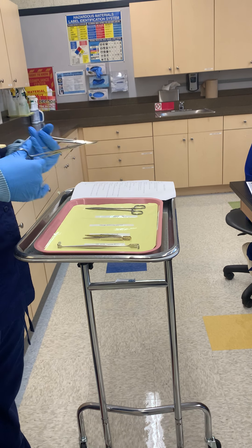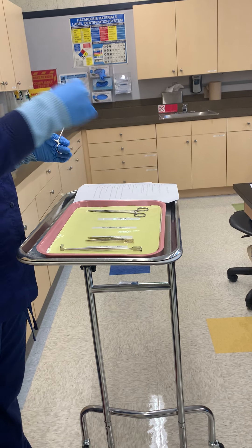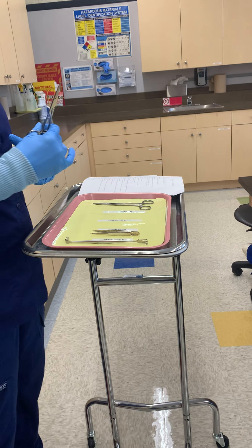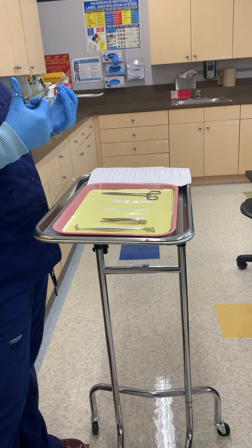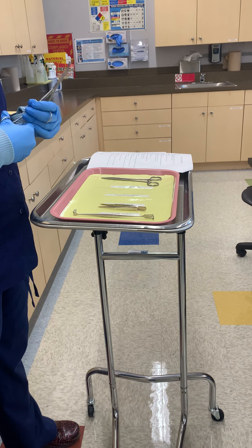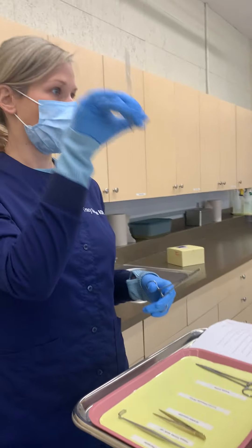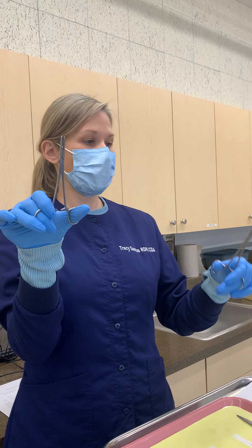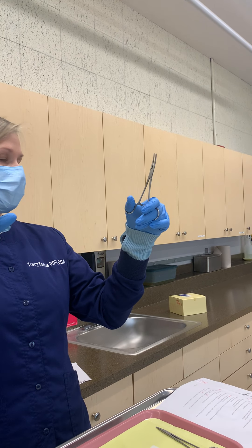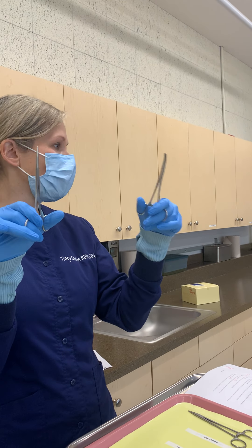If there's a vessel that's bleeding, you clamp it off with a hemostat. There are lots of different uses for hemostats, but in surgery its primary use is to control and stop bleeding. We have the straight — it's straight — and we have the curved — it's curved. That's the difference between your straight and your curved.